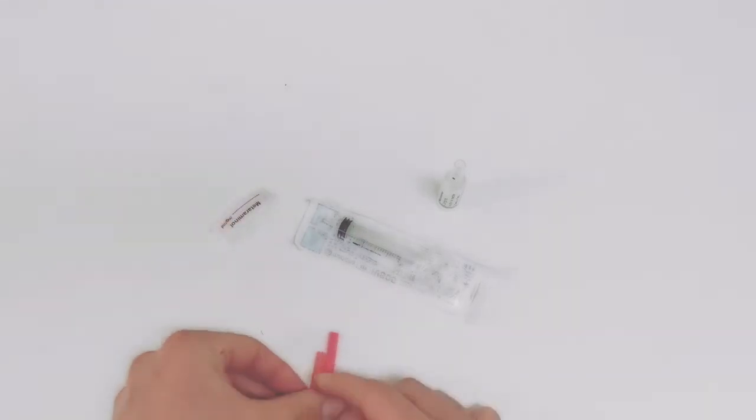So you need your drug, correct size syringe, drug label, and a needle.